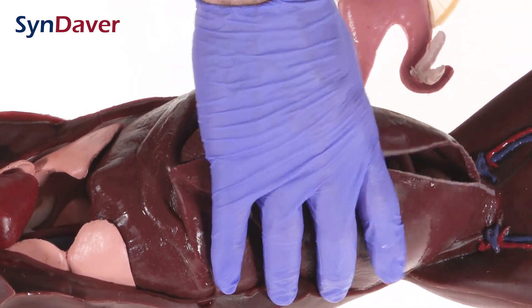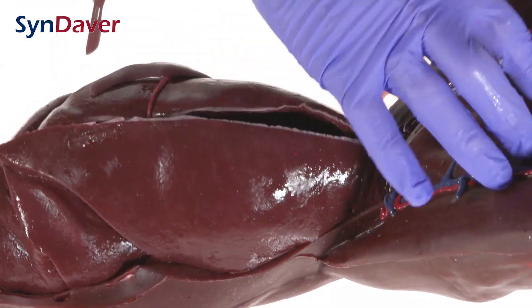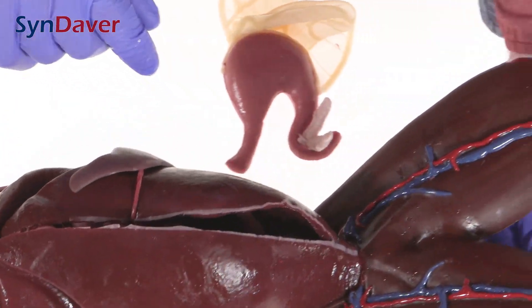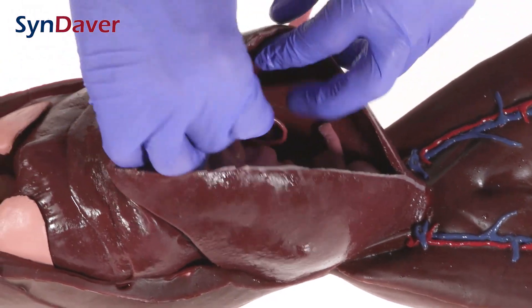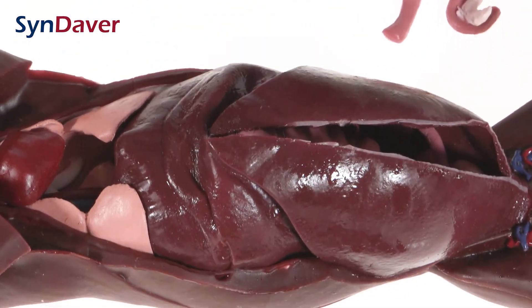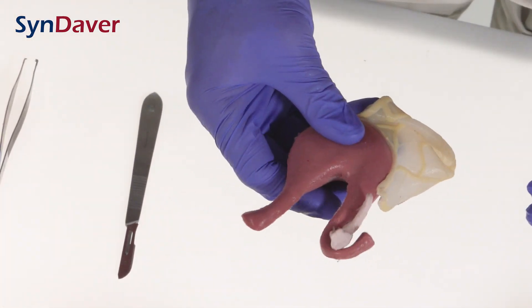You can also see the vasculature, and underneath the rectum, in this case the vulva are represented on the backside. Once you've done your identification of the different organs and gone through that protocol, you can reassemble it — putting these back inside — and then you can always reference it in the future.